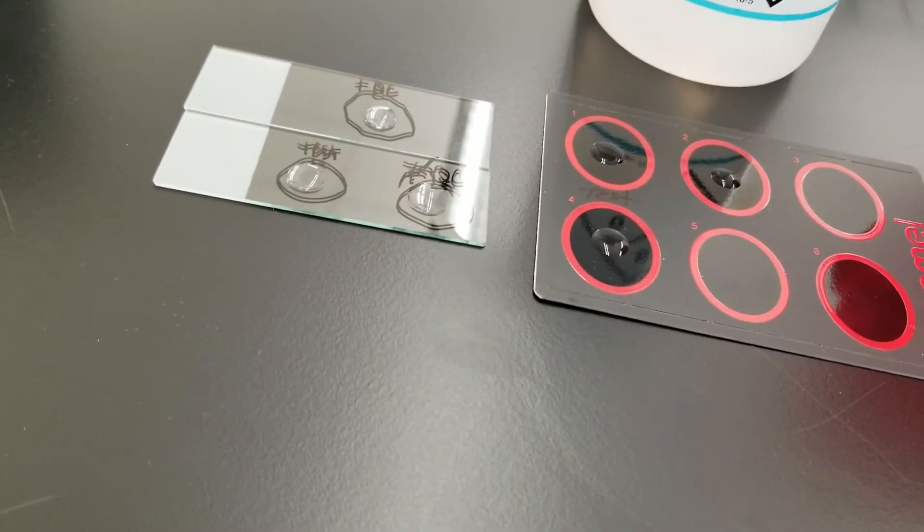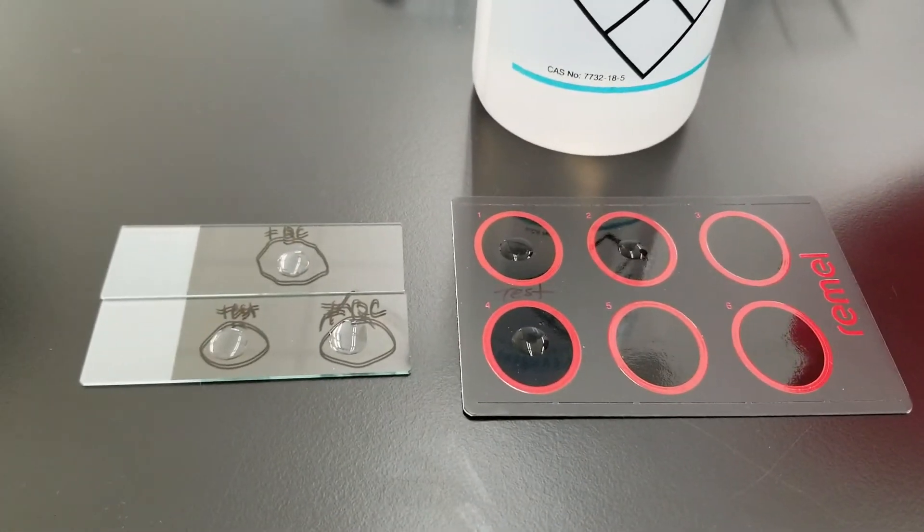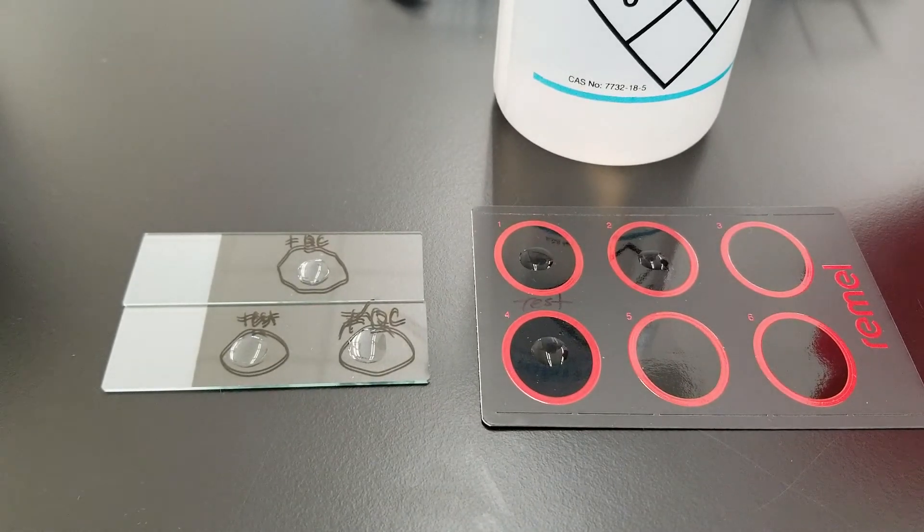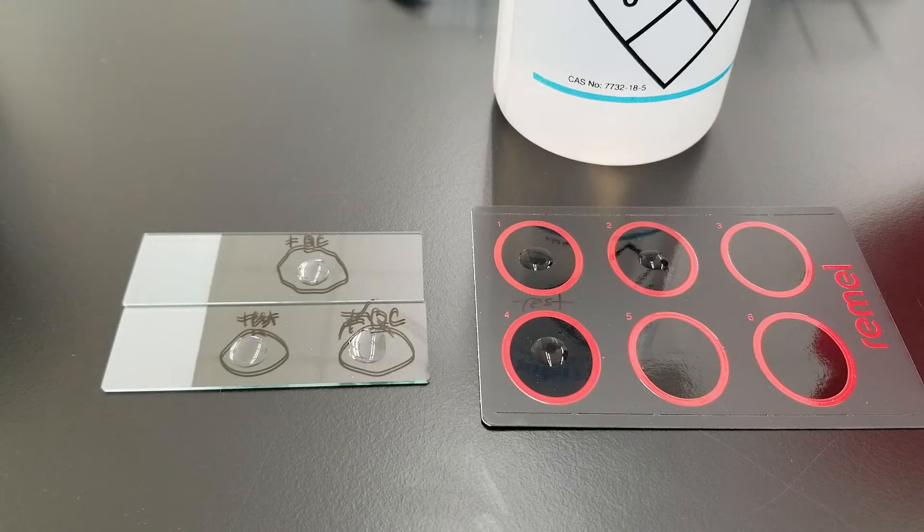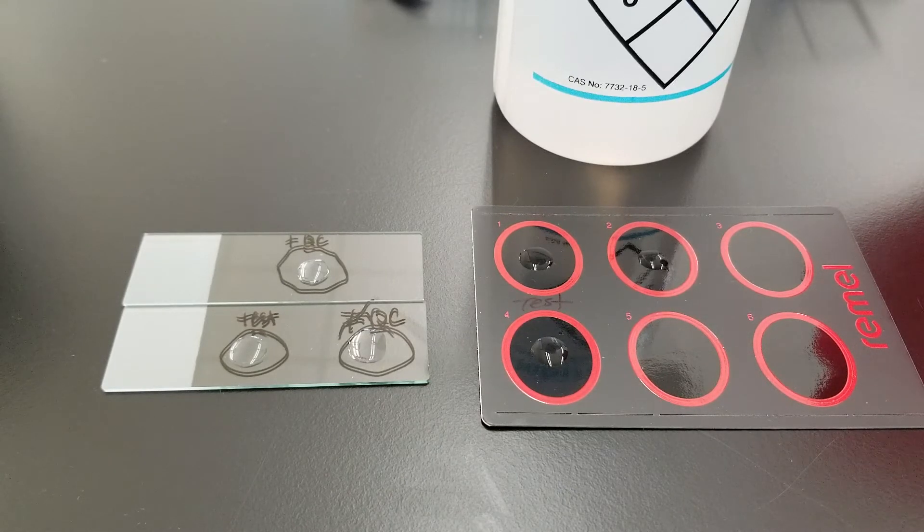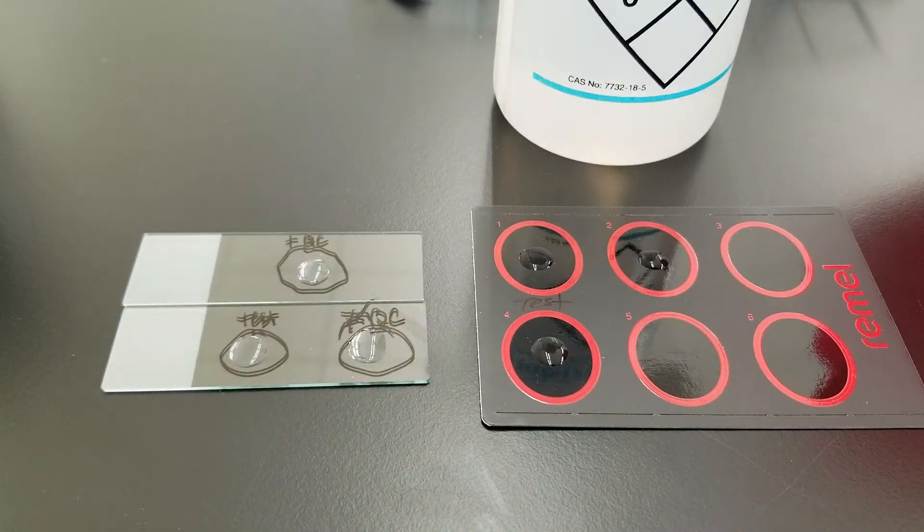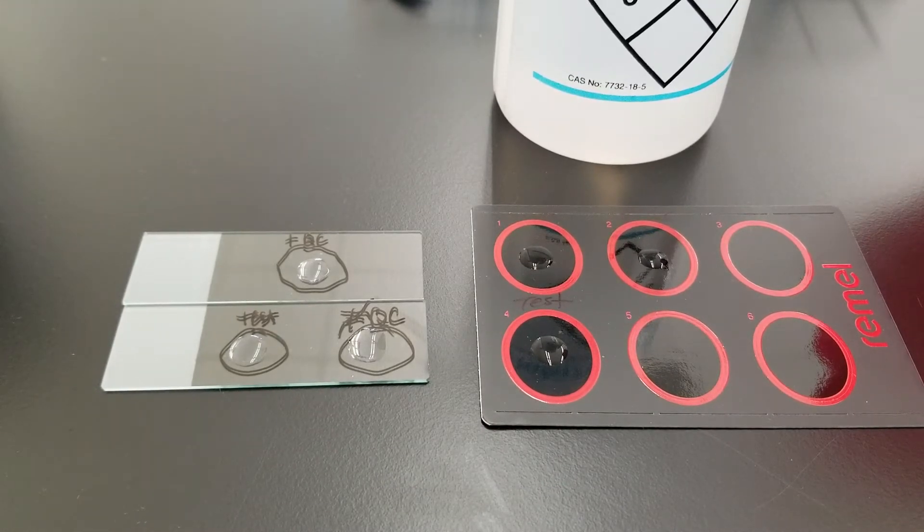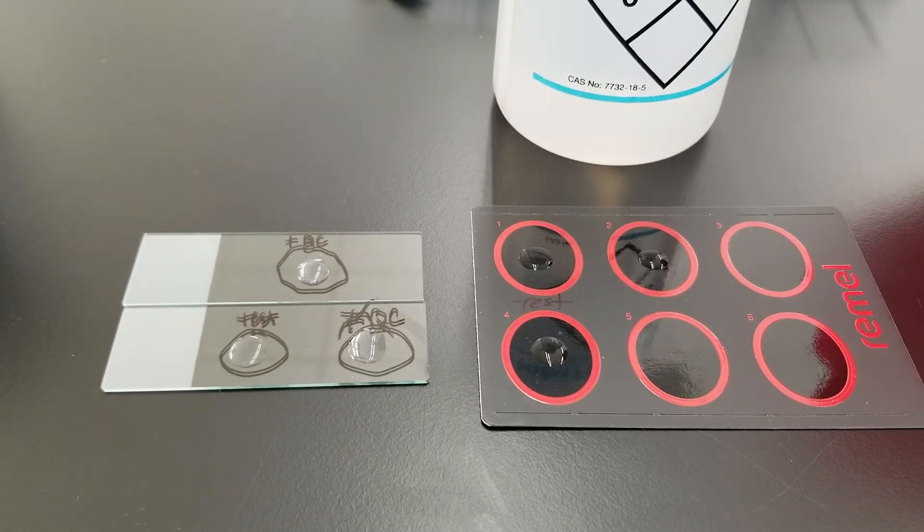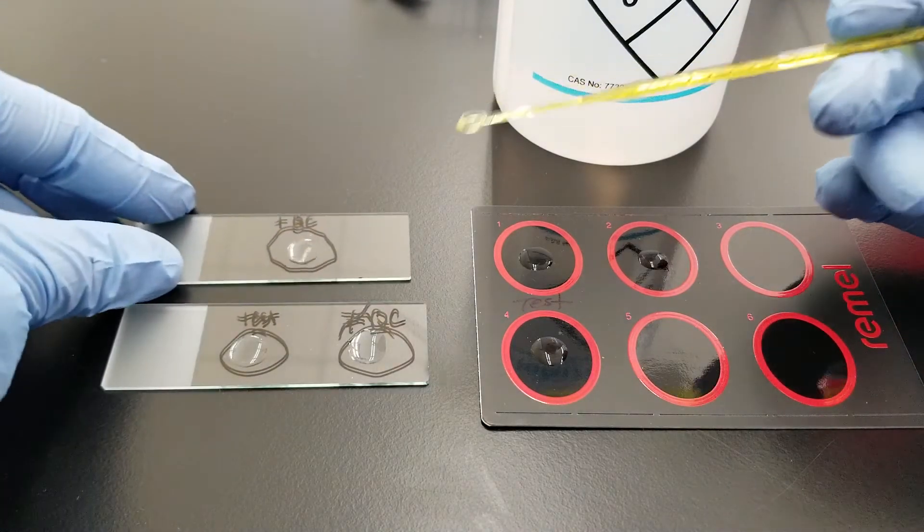I'm going to take a... whoops, I'm so sorry. This video is becoming a mess. You know, these are all done live and the mistakes are real. They're funny, but just to show you they really do happen. It is hard to video and do these reactions around a camera and I do it all myself. I'm sorry for some of the negative comments that I get from viewers where they say it's not perfect, but life is not perfect. And I'm sorry that you're not watching perfect videos, but you roll with the punches and you do what you got to do. This is going to be the positive QC, it's Staph aureus. I had a plate for something. It doesn't look like colonies because it's a whole plate, but you want to take the amount of one to three colonies on your loop.